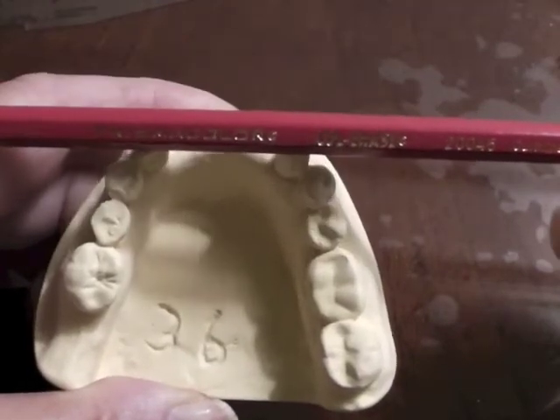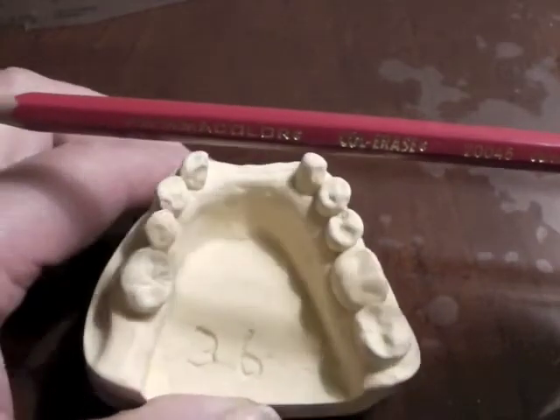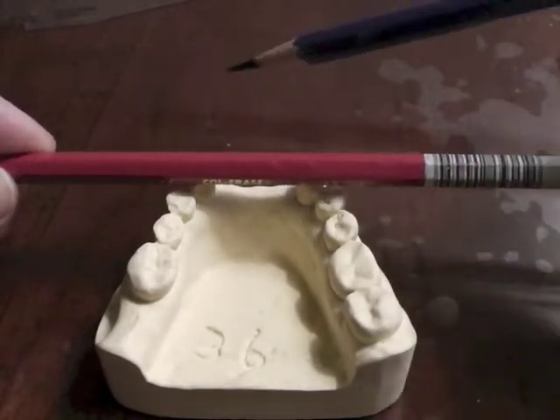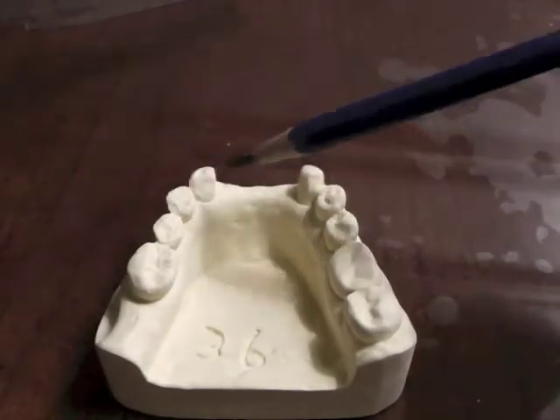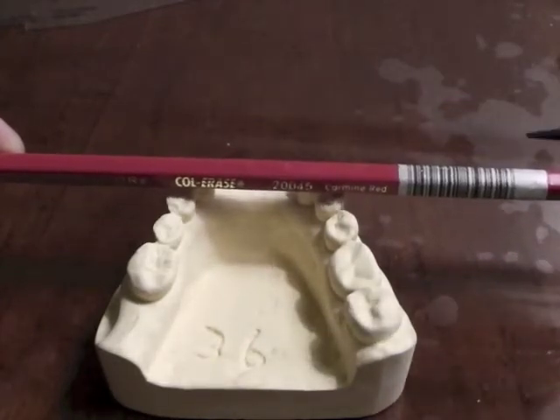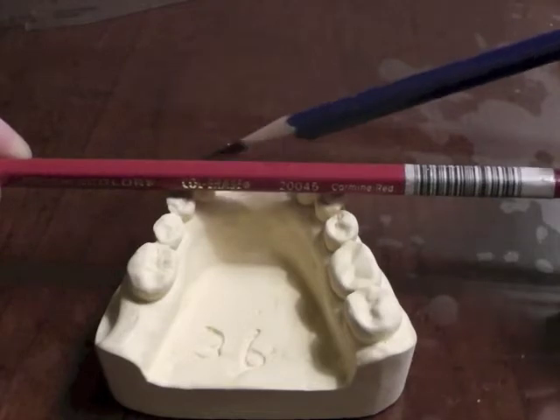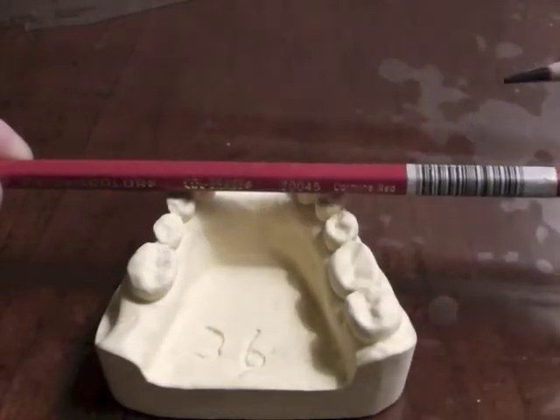We look to see that our fulcrum line on a Kennedy Class 4 is right across the two anterior abutments. In our rules, we find that this partial denture is wanting to lift up in this direction when the patient eats sticky foods, and when the patient bites down, the back wants to flip up. The rules say we should have a direct retainer close to, or actually in front of, our fulcrum line.